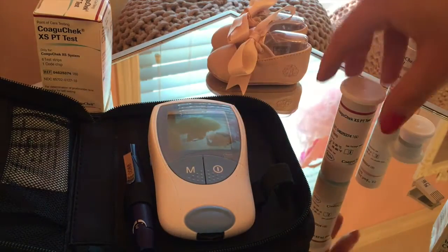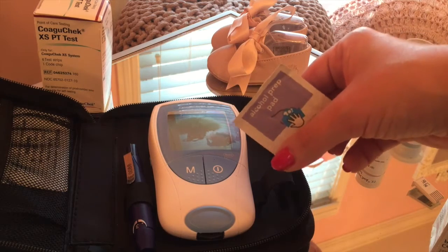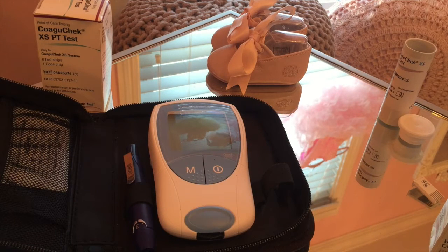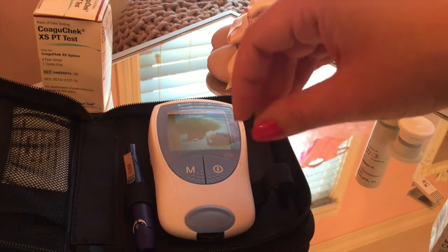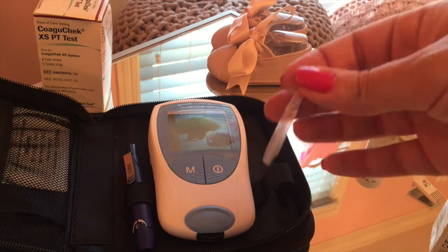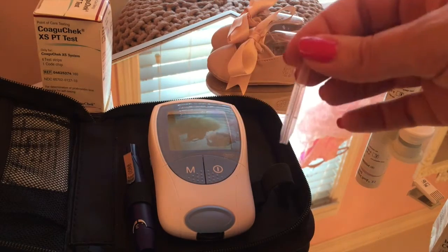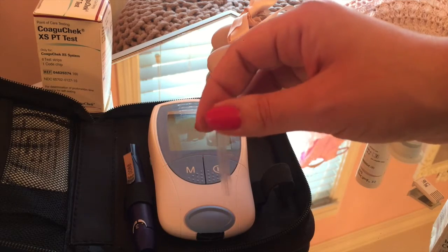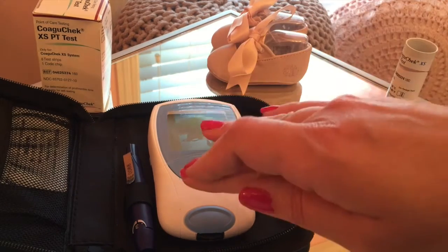That chip is what's going to match up to the test strips. When it's time to do the test, they advise you to use an alcohol pad to wipe your finger before taking blood to prevent infection. But I would rather just wash my hands with really good soap, because you don't want to do anything that could potentially dilute your results — and the alcohol wipes could potentially do that. They also provide these little capillary tubes to collect the blood and then transfer it to the test strip, but I worry there's a delay and my blood might clot between collection and the strip.